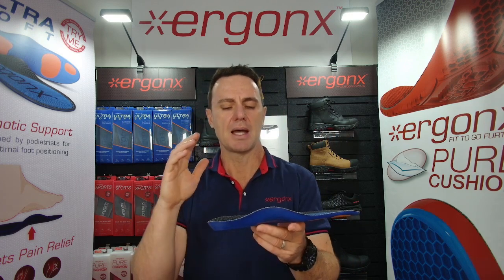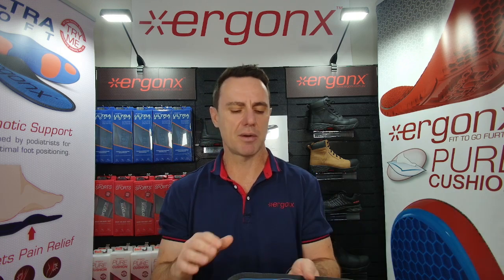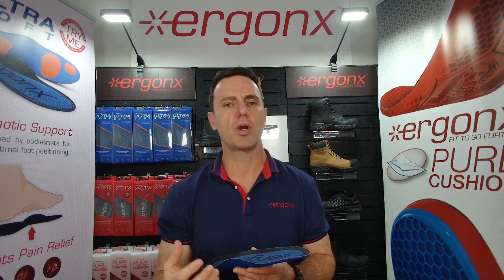The features we're looking for in an orthotic insole for teachers is much like anyone — factory workers or retail workers. If you're on your feet all day doing a variety of duties like standing statically or chasing kids around the playground, we want to support and cushion your feet so they work less and are more comfortable across the work day.